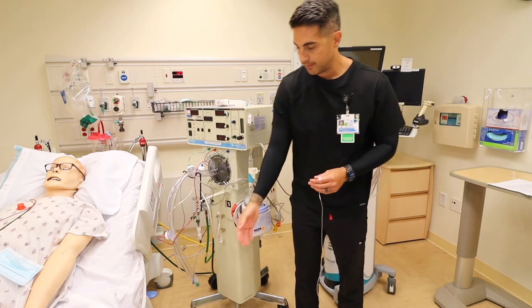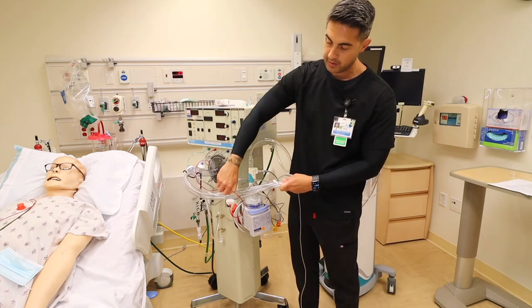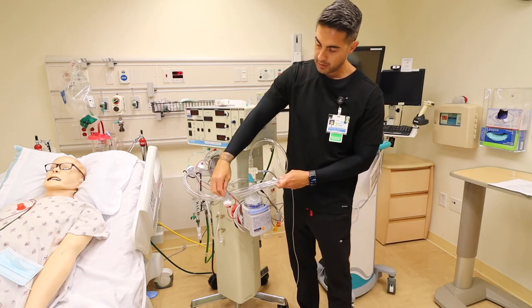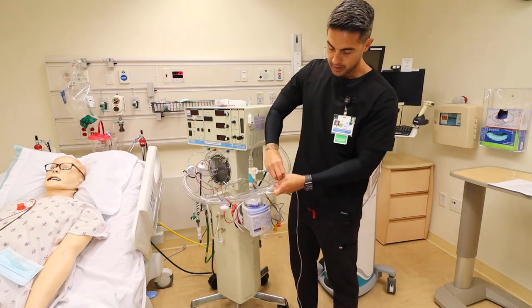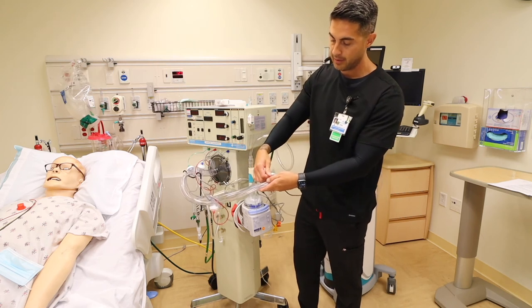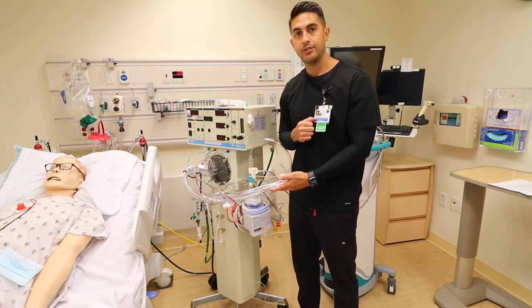For the sample line in the HFO circuit: move your temperature probe from this position to the middle position — make sure you don't lose your cap. Move the heater probe to the back. Add the elbow, then attach your sample line to that elbow. That's how you insert your injector module and sample line into a high frequency circuit.